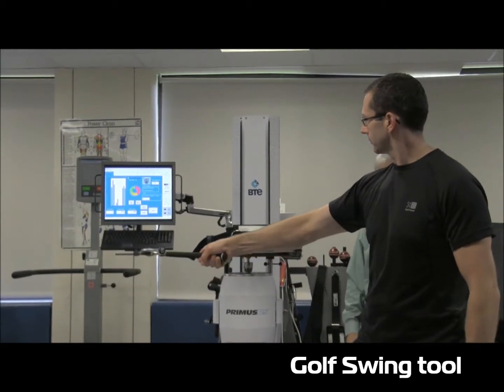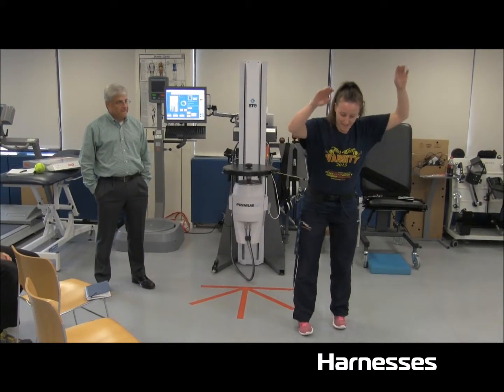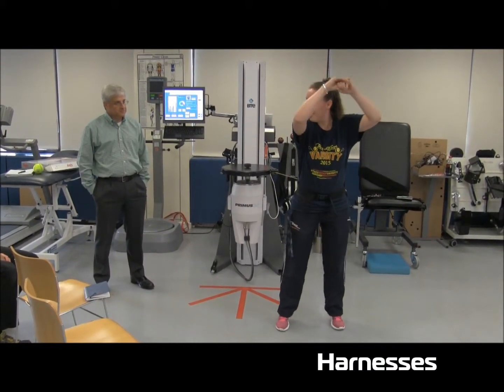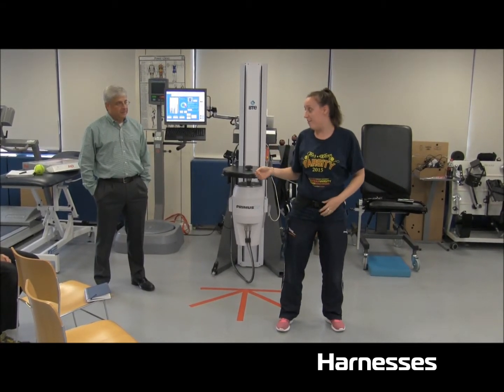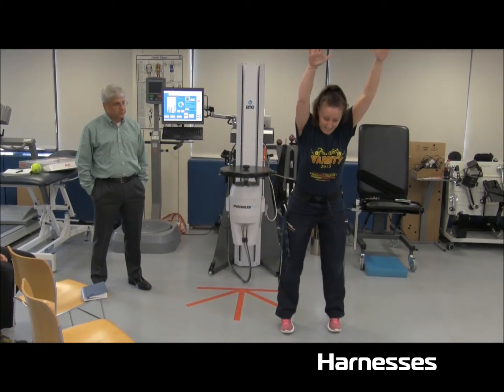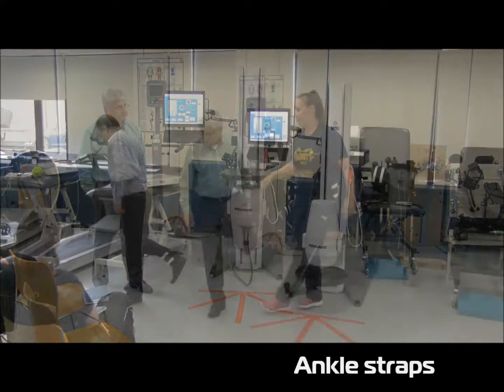It's very stressful. If anybody wants to — netball — this is pulling me back all the time to balance yourself, that would be incredible. Like a workout for netball, as if I'm marking someone all the time like this, and that's pulling me — and I have to pull that one.